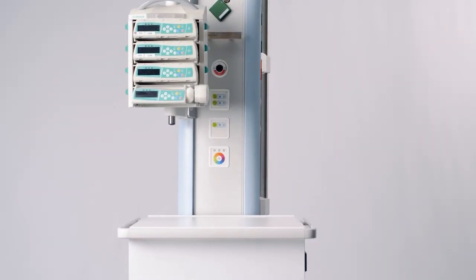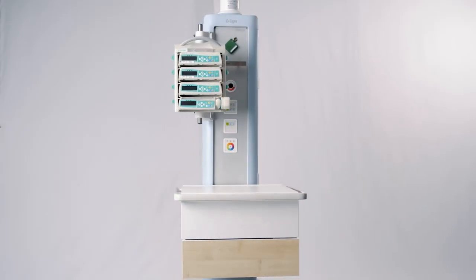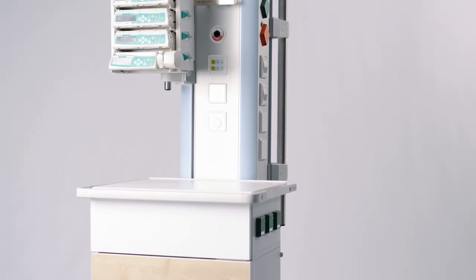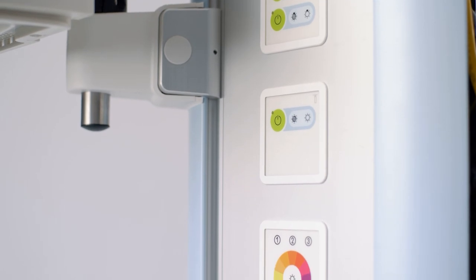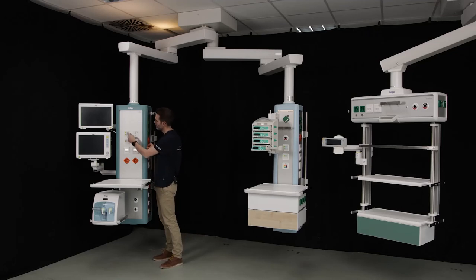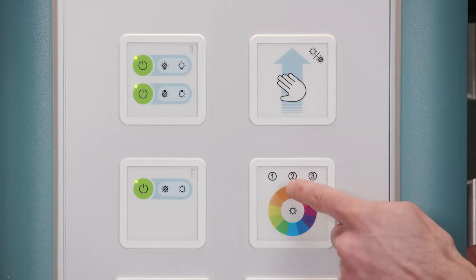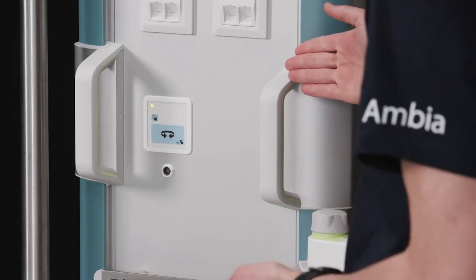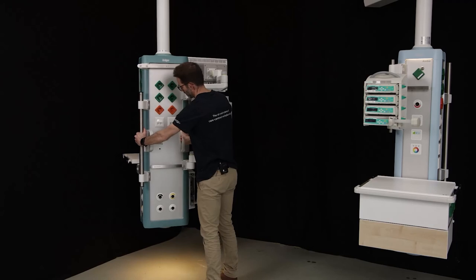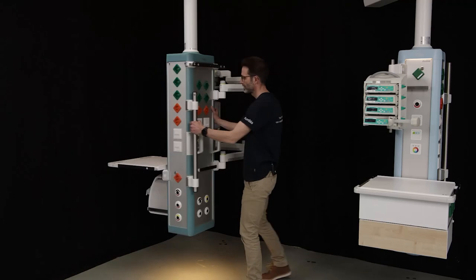The ergonomic design of our new supply units offers numerous benefits. Accessories and medical appliances can be freely mounted at any height. The particularly intuitive operation is characterized by user-friendly interfaces and intuitive touch control panels. For example, we have touch-sensitive buttons to control the lighting options. All brakes are released by simply grasping the wireless handle, which is equipped with a sensor. Your staff can intuitively position the supply unit with one or two hands and react quickly in critical situations.